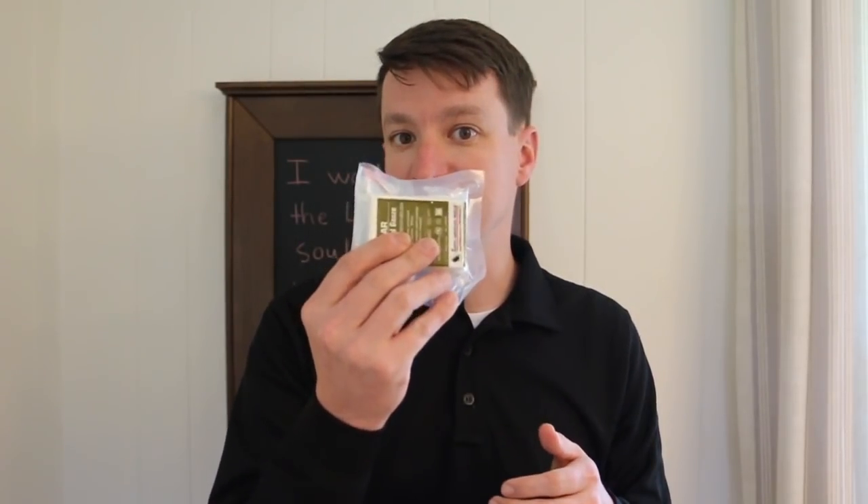As a quick reminder, there's no hemostatic agent associated with this gauze — this is just gauze. You're not talking about combat gauze, you're not talking about Celox here. This is going to be used for wound packing, but you can also use it for moderate bleeding. If someone's got a nasty cut, doesn't need a tourniquet, just needs good direct pressure, you can pull this out of the package and use it for that as well. It could even replace a 5x9 — a little more expensive than a 5x9, but it could work. This could be used around the head, which bleeds very easily and can be difficult to control. So lots of uses for this gauze beyond just wound packing.